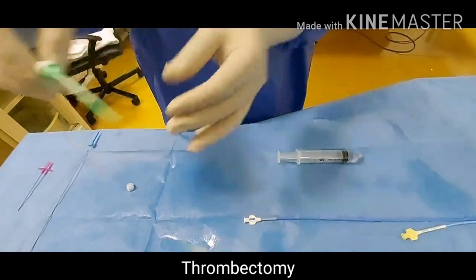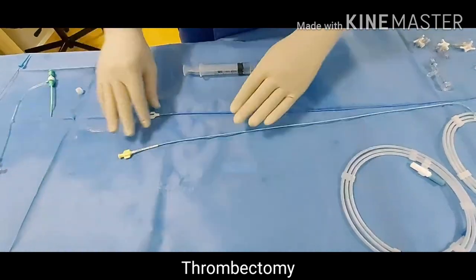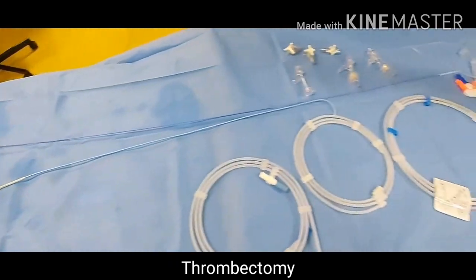Then flush the dilator, click it — you should lock it, then only it is fit for use. We need a 6 French guiding catheter. Usually we are using 6 French choperon and 5 French sofia. This is a long 125 cm sofia catheter, this is also 5 French.